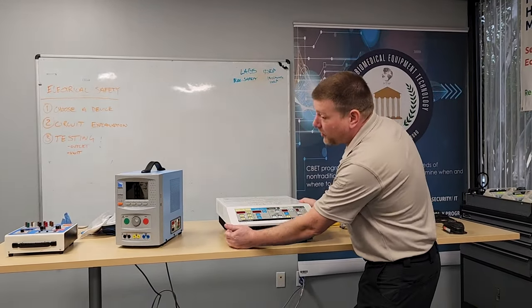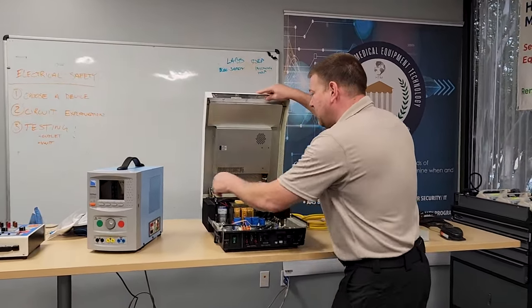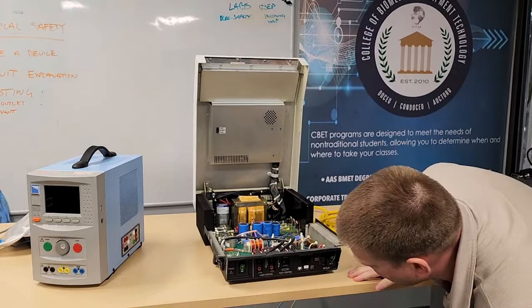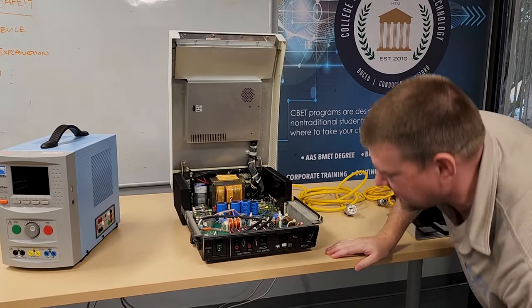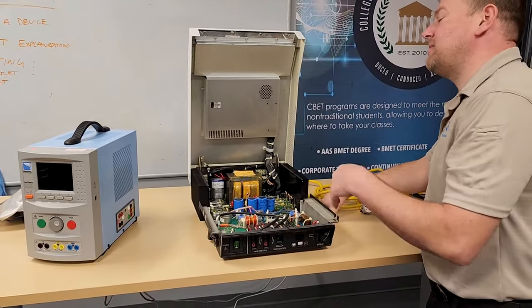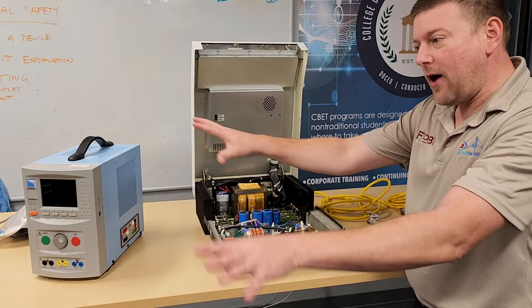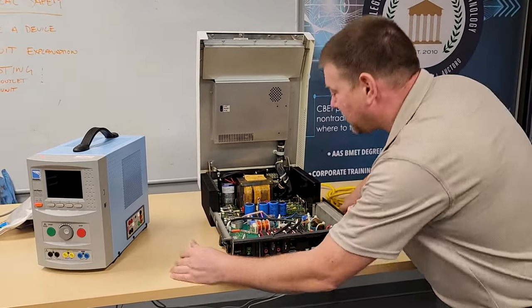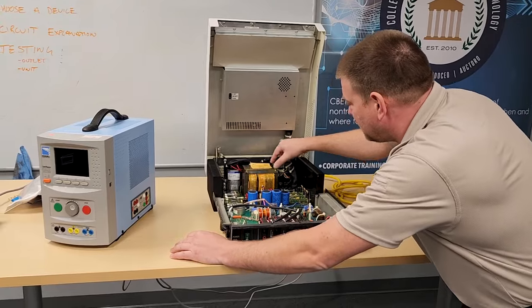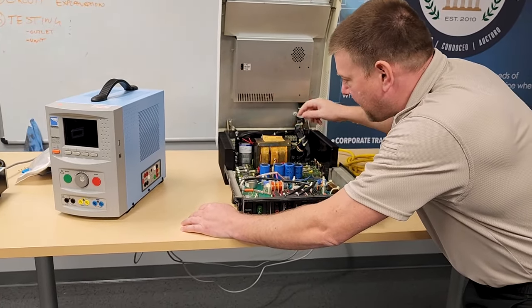Before plugging in, do a thorough physical inspection of the unit itself. There are two fasteners on the back that I've removed, and that brings the front cover to its resting position. You want to make sure there's no fluid coming in on the front panel, and you want to look for signs and traces of fluid that might have gotten inside the device. We're talking about burns, which means a grounding problem or some seepage of electricity from this device out into the patient care environment. On closer inspection: relays, caps all seem well-fastened to the board, main transformer fastened, cables are old but intact, large capacitor in the back is secure.